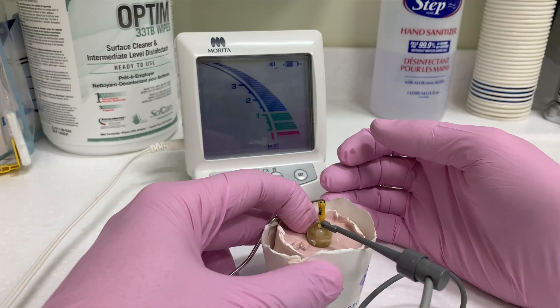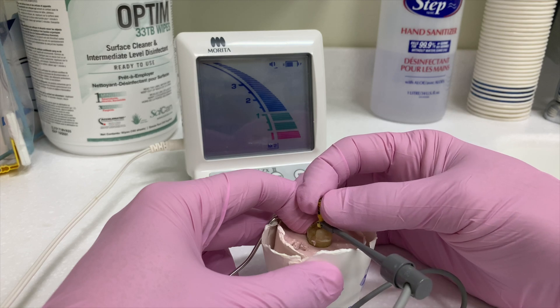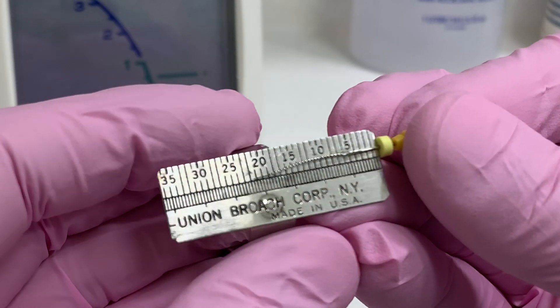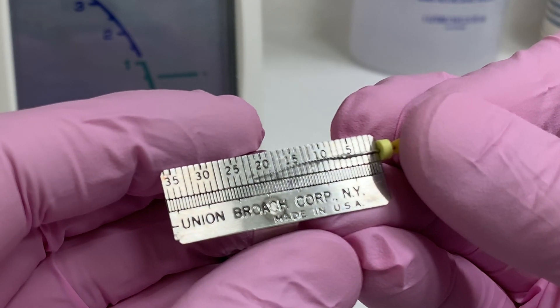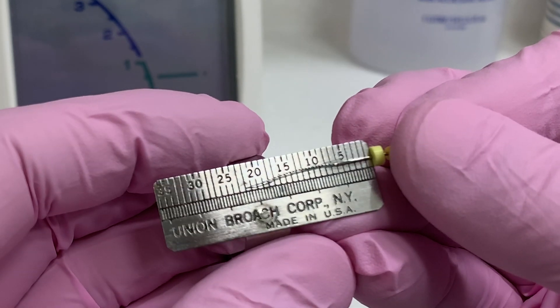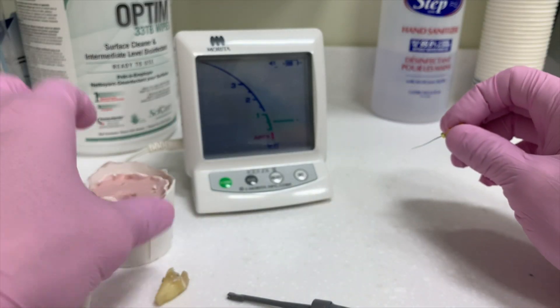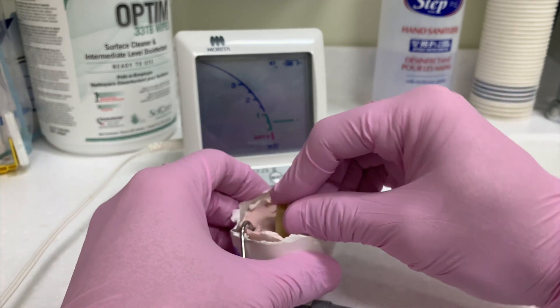We're going to get to four red bars on the apex locator — it reads 22 millimeters. I'm seeing 22 millimeters to the four red bar, so let's put our tooth back in the alginate.